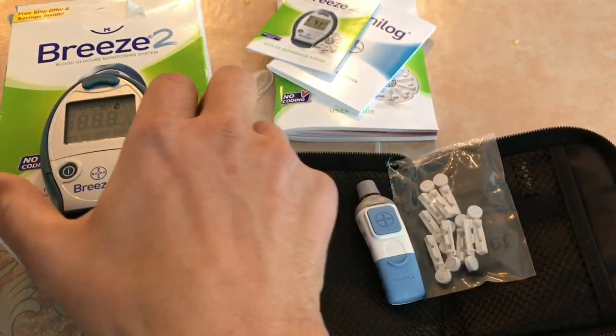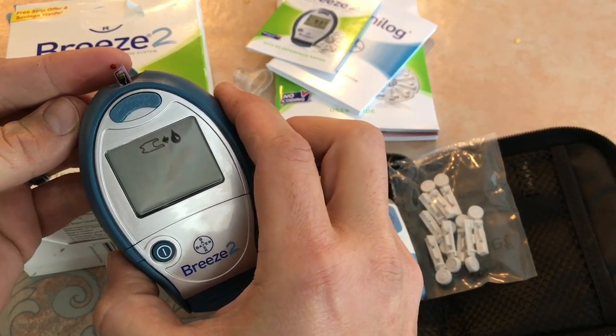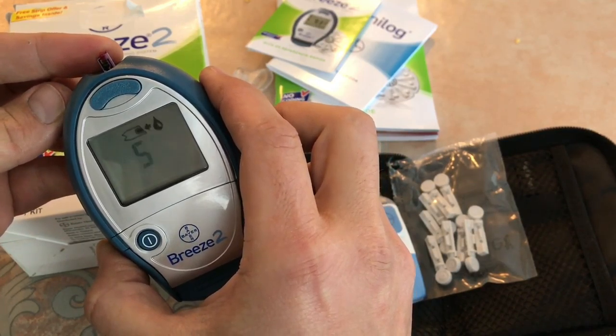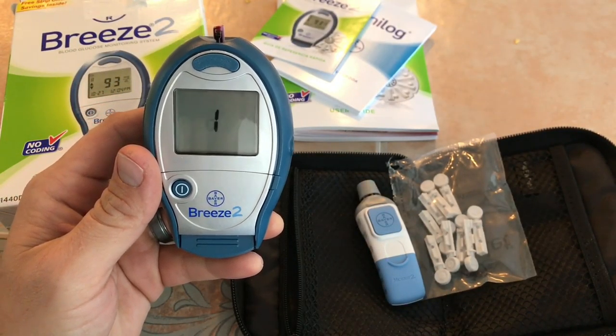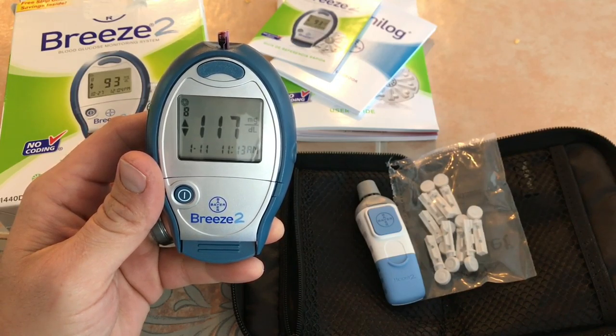It's so powerful and important to be testing your blood on a regular basis. Let's see what happens because this is kind of funny. I test my blood — I love the countdown — and then this number comes up: 117, which is completely impossible.